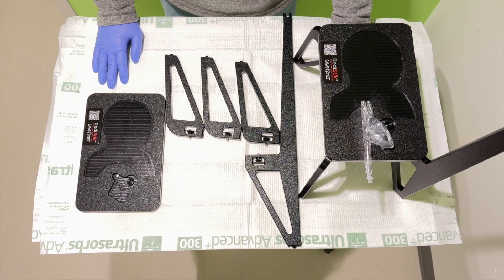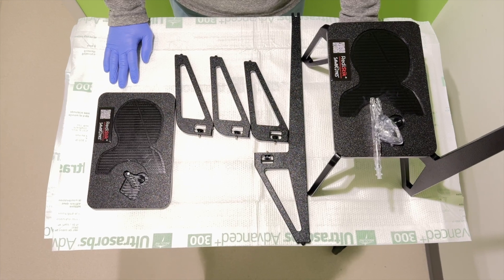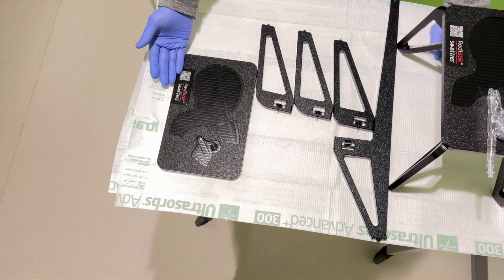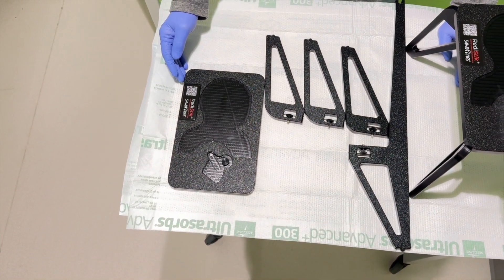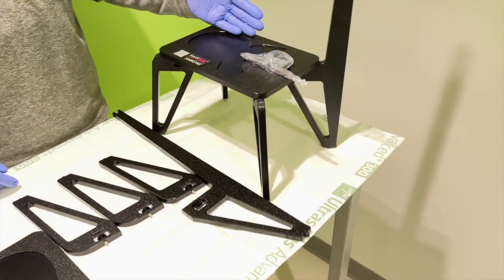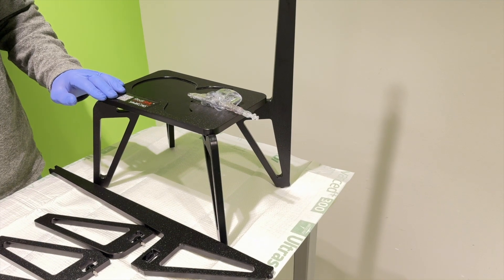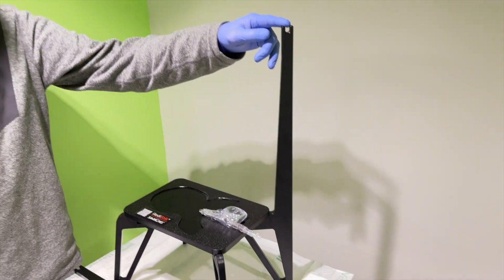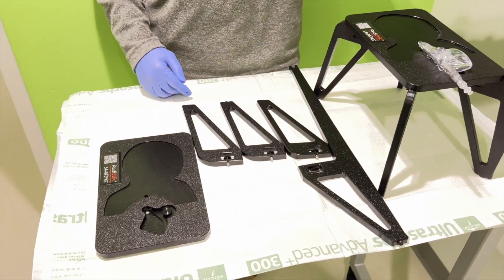We're going to show you two examples of ways to set up the neonatal ECMO trainer. One is flat on the surface without the extension — if you use this, you will need something to hold the IV bag. The other option is eight inches high, which we found very useful for conferences and any kind of table. It gives it a lift and you can also hold the IV bag there. Either way works; it's two different options.